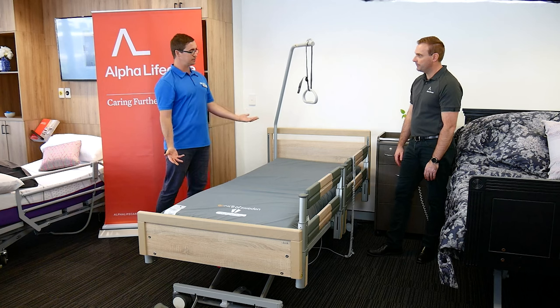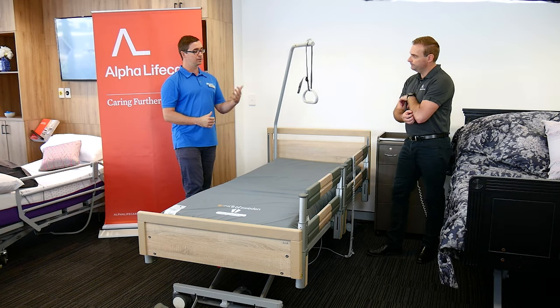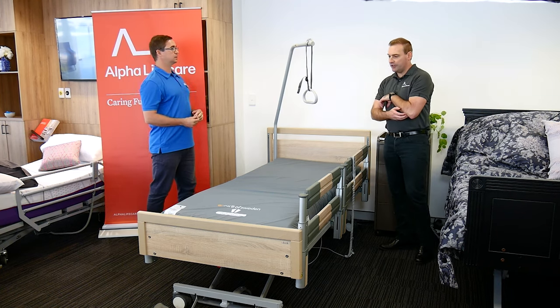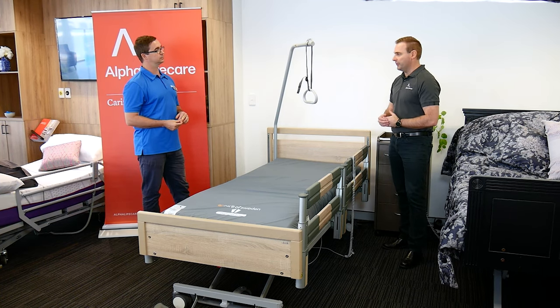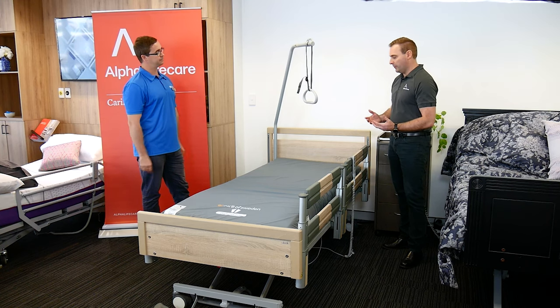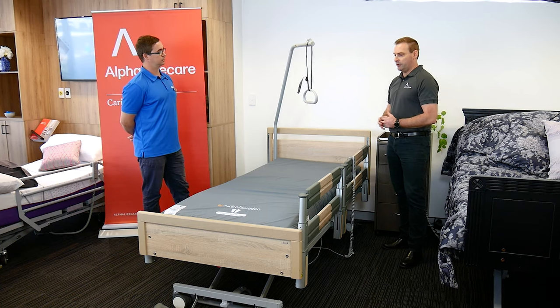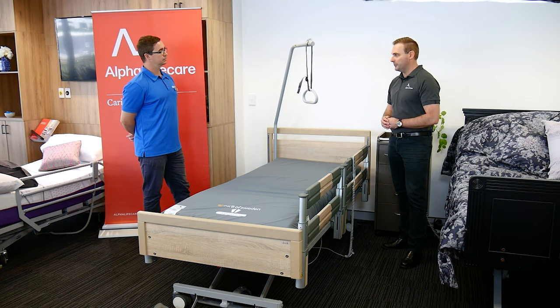Who typically buys this type of bed? Is it more of a disability group home, residential aged care facility, or do we also see these in individual homes? We see it in all those scenarios. They are very common in the aged care market — aged care facilities and group homes. They are a German bed, so the quality is great, you've got longevity, really precise engineering, and they stand up to all sorts of rigors and treatments.